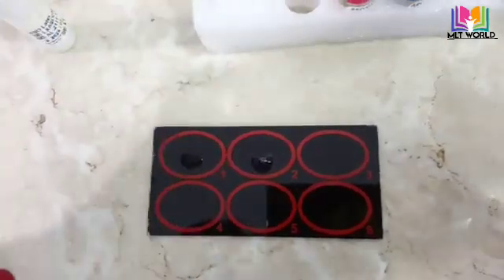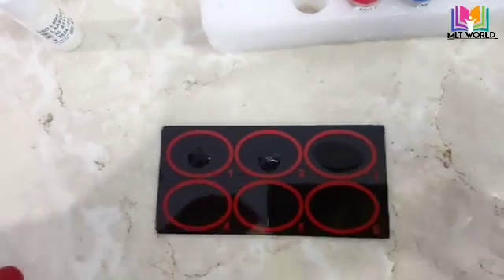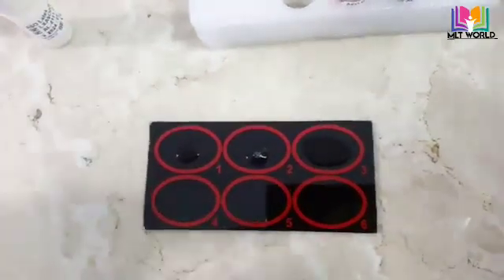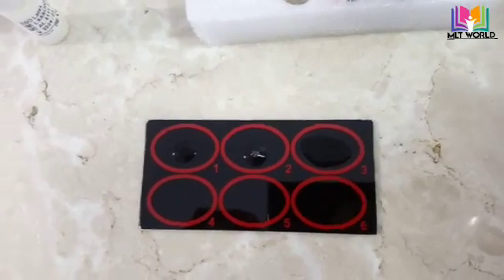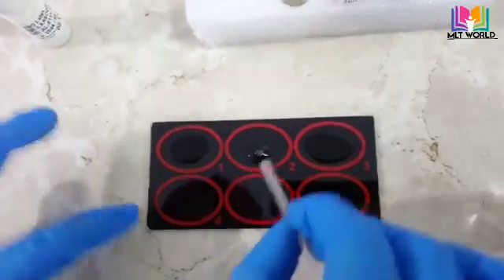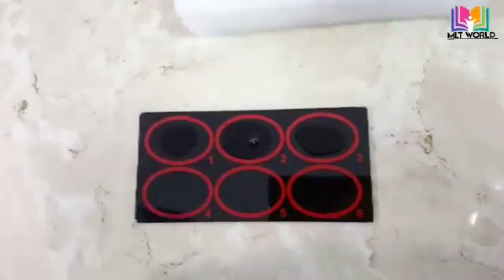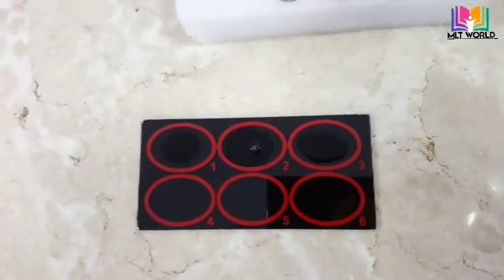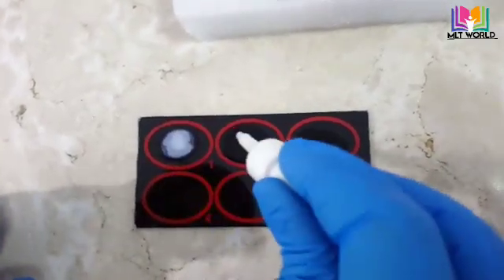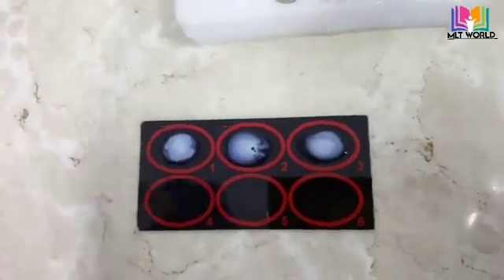I will drop the serum in the third circle with the help of the stirrer that comes with the kit. If you are using one stick only, then mix the positive control and change the side of the stick. The most important thing: the reagent should be at room temperature. Mix the reagent well before dropping, then drop one drop of ASO reagent into each circle.